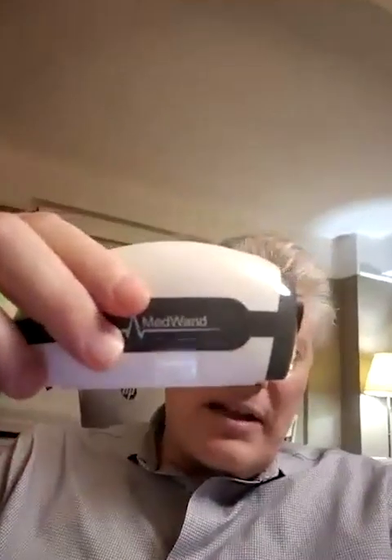I would like to introduce another device that we are integrating into the Life Health ecosystem. It's called the MedWand, and we have a hopefully exclusive relationship with this company, certainly in the developing world markets. It's a very robust device, as I'm going to show you, but it looks like a mouse, and it's a really simple product to use.